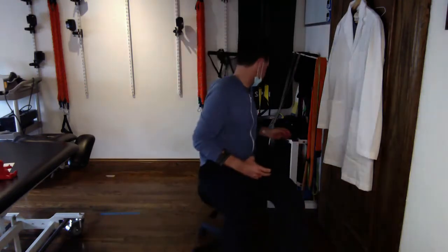I'm going to talk about a couple different ways that we do here in the clinic. More than ever, I really recommend using something underneath the BFR cuff. We can put this directly on the skin or we can put it directly over clothes. Of course, you want the clothes to be super tight — you don't want a lot of wrinkles because it's going to be really uncomfortable. But if they're in a short-sleeved shirt, it's going to get on their skin. So the best way to keep it sanitized, because they are going to sweat, is to use something underneath.